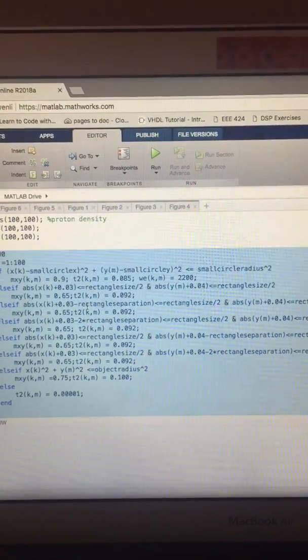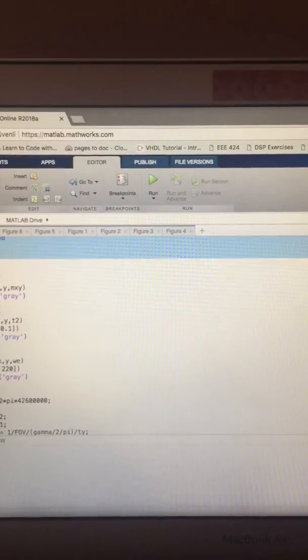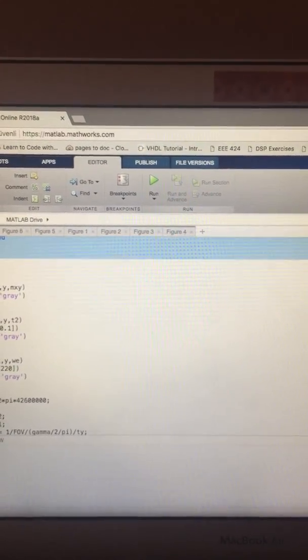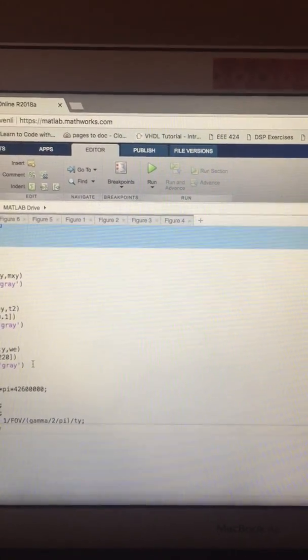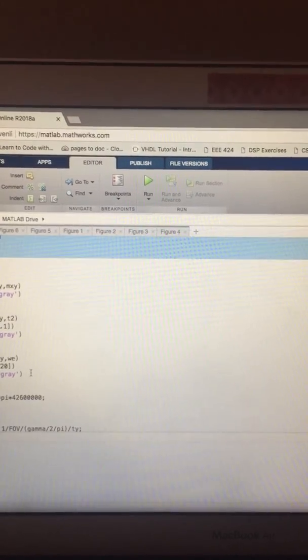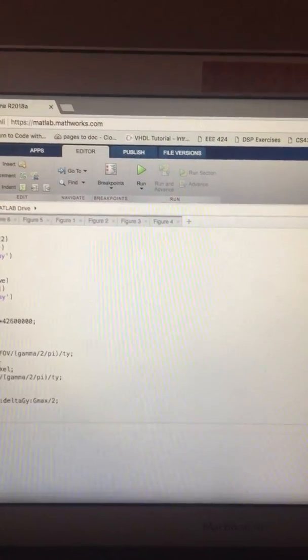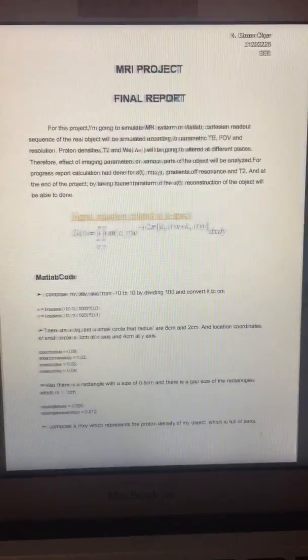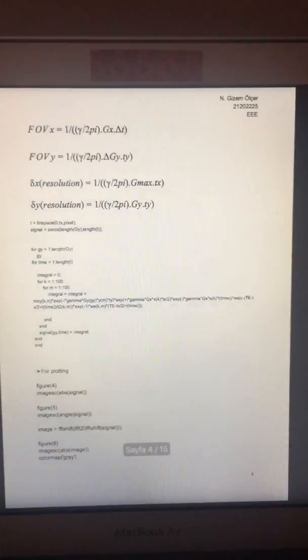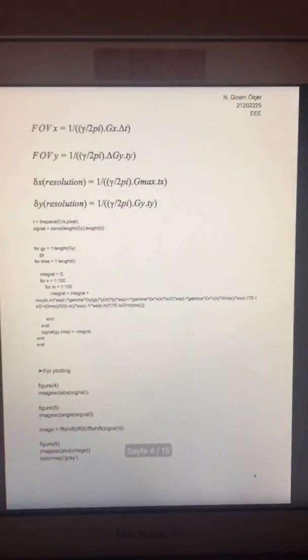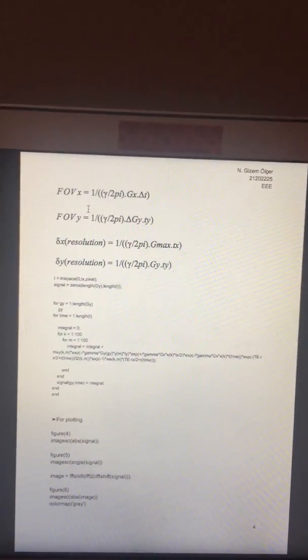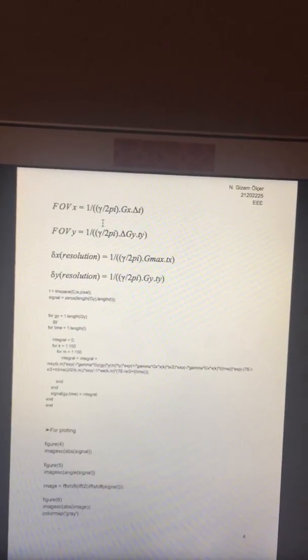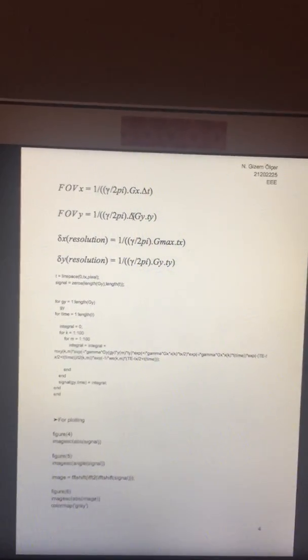This is for the mapping scales and color arrangements. In order to make a calculation of ST, we need some parameters. Here, there is a formulate of field of view. Just a second. Field of view formulate is here, and it contains, as you can see, GX and GY, which is needed for ST.